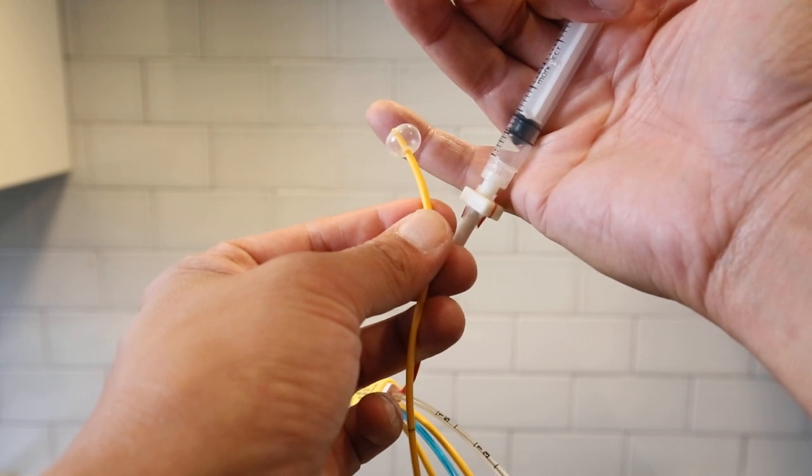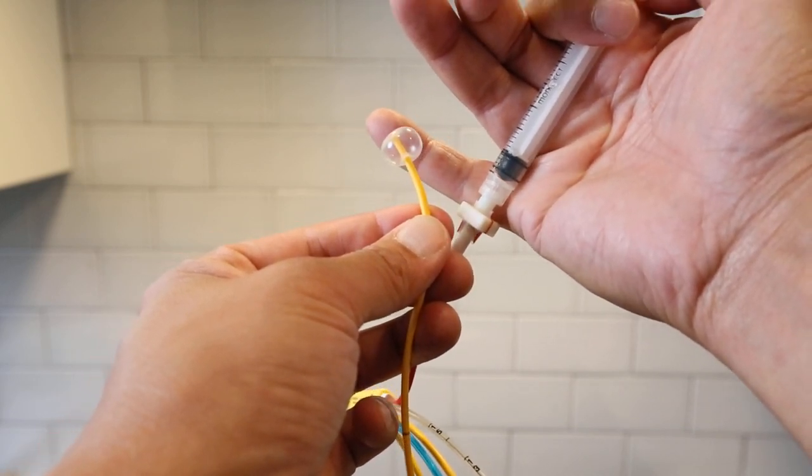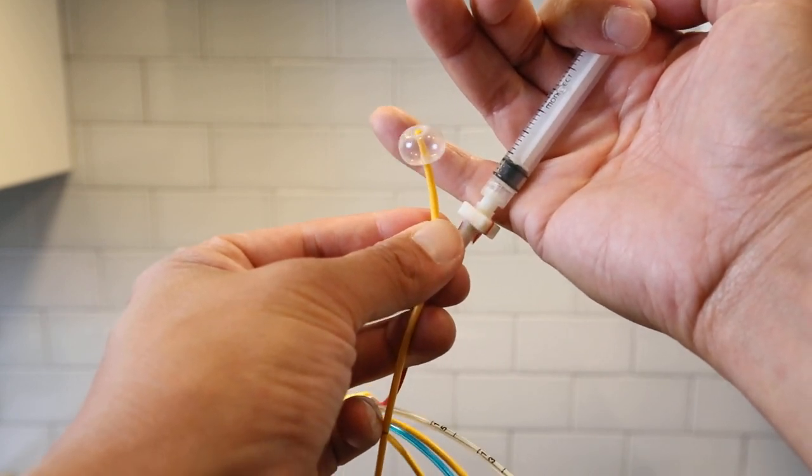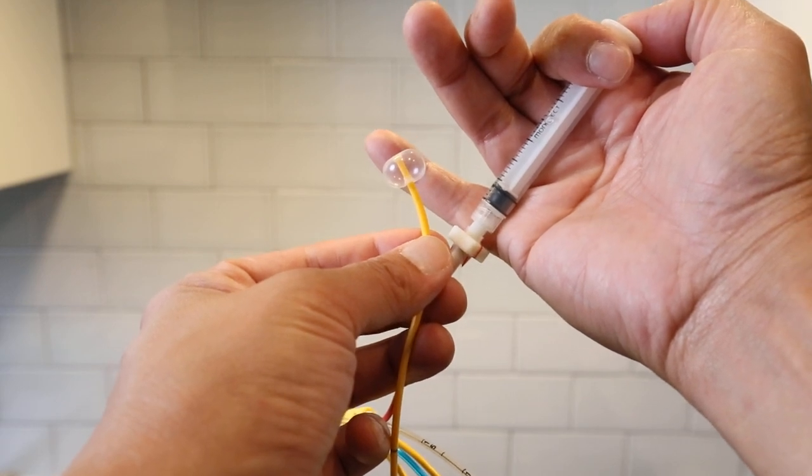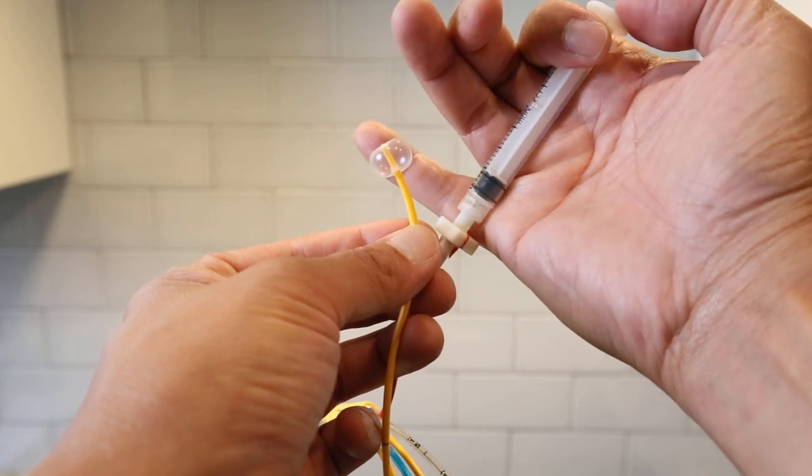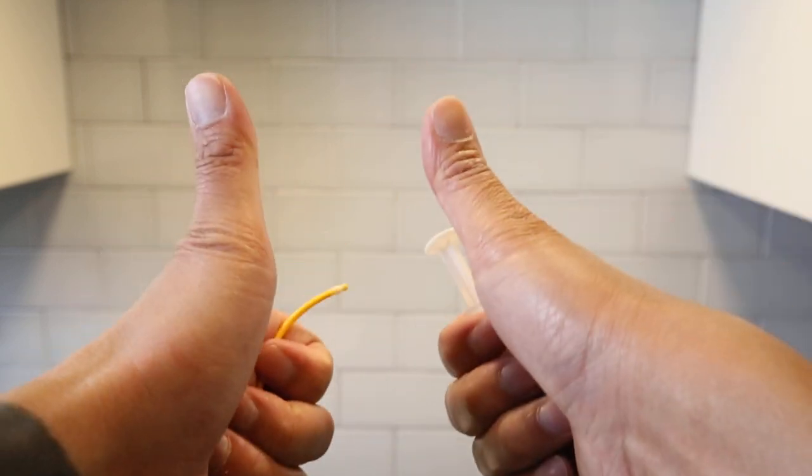Because the balloon already inflated. If I keep going, it just gets bigger and bigger. And this is way big, and that's all the way at the end. And you never want to leave this open. I mean, you never want to leave this inflated and then leave it there. You get your reading and then you deflate right away. Okay? All right.